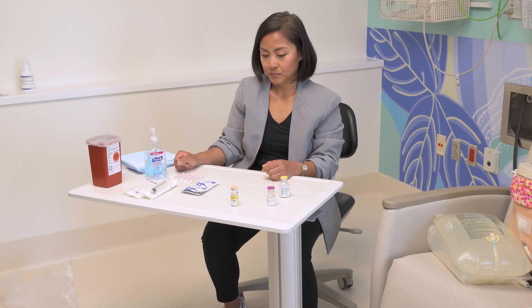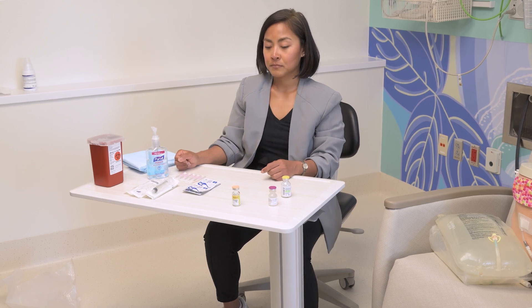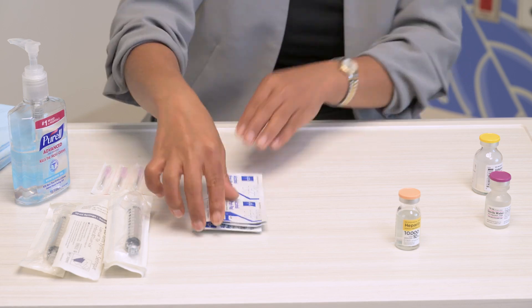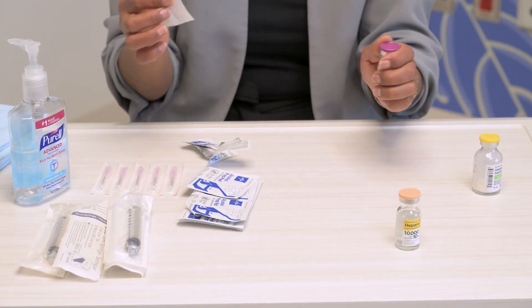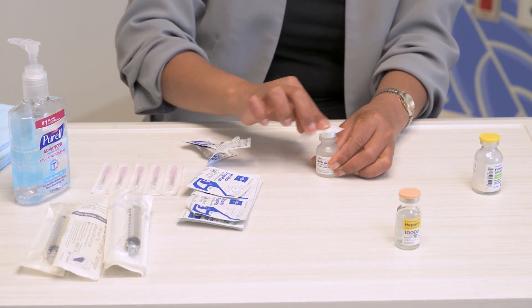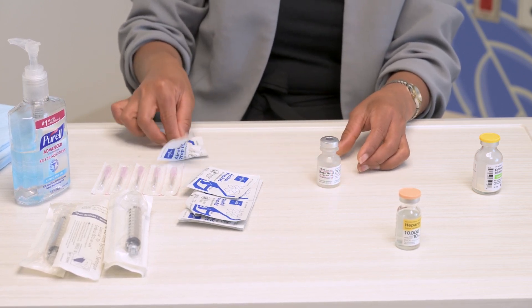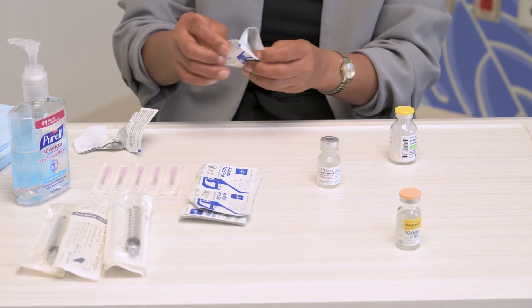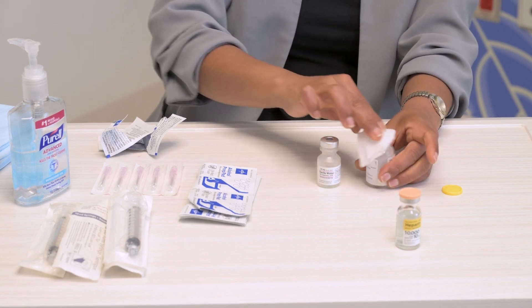Now I will show you how to mix a powdered antibiotic like cefepime into liquid form. Gel hands and then scrub the top of the sterile water vial with an alcohol swab for 15 seconds and let dry for 15 seconds. While the sterile water vial is drying, scrub the top of the antibiotic vial with a new alcohol swab for 15 seconds and let dry for 15 seconds.